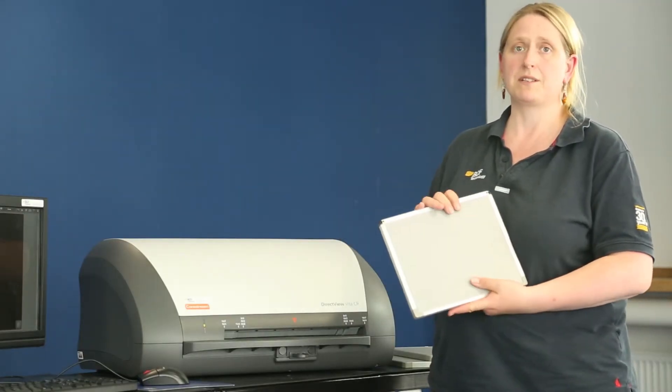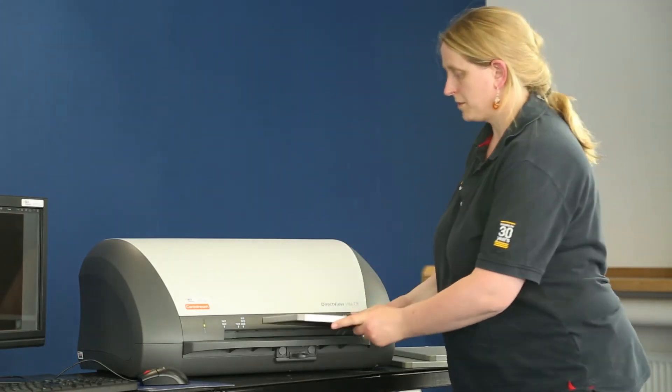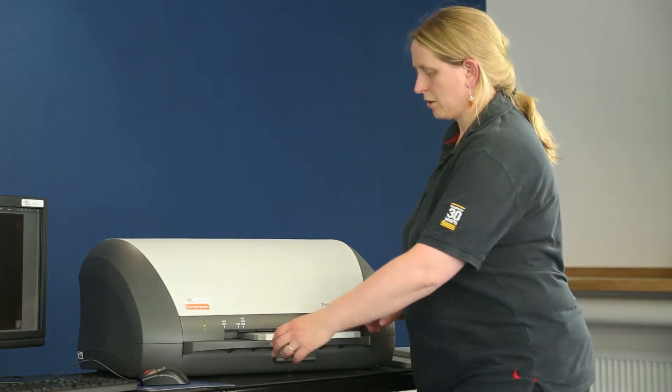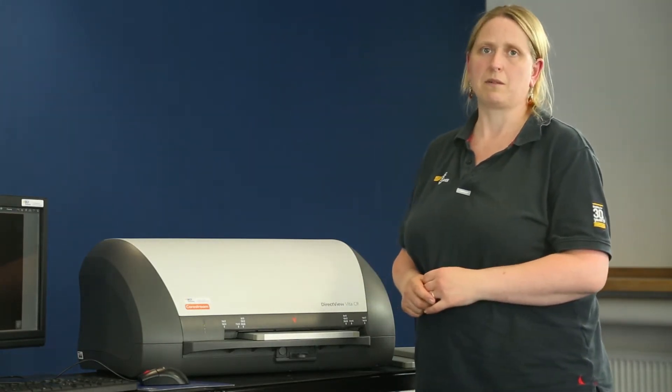When you need to process a plate, remember that the grey side is up and it's red arrow to red arrow. Position the plate, push it forward until it stops and then give it a push with two hands. The machine does like a determined push rather than a gentle push, as that makes it easy for the machine to pick up the plate and take the screen out.